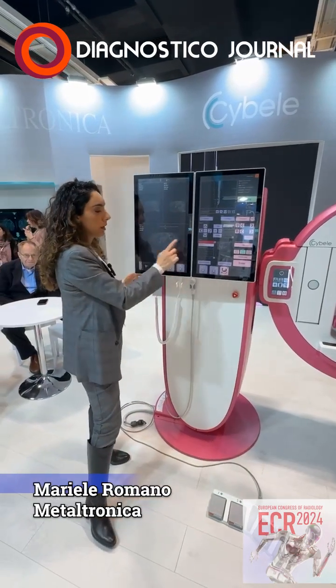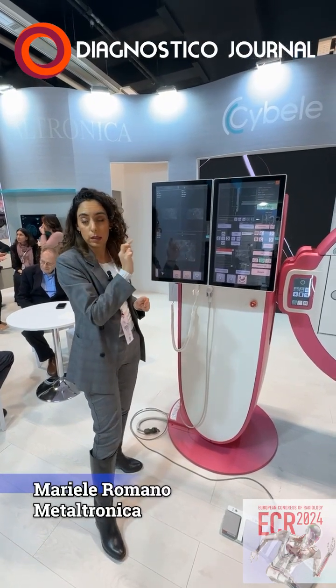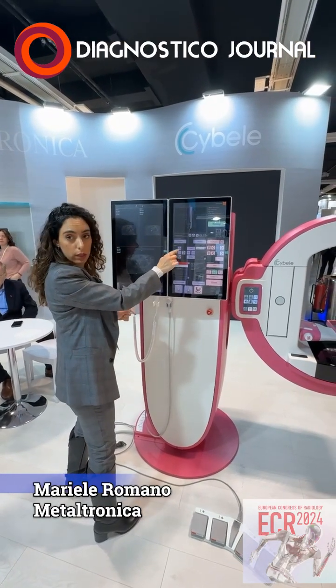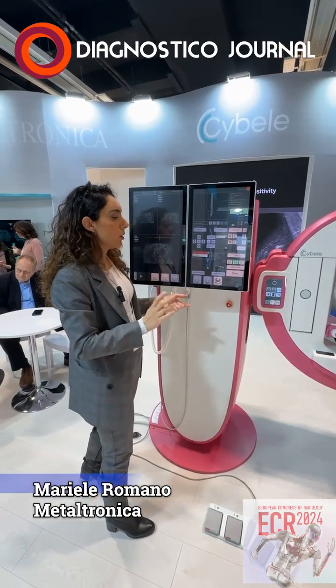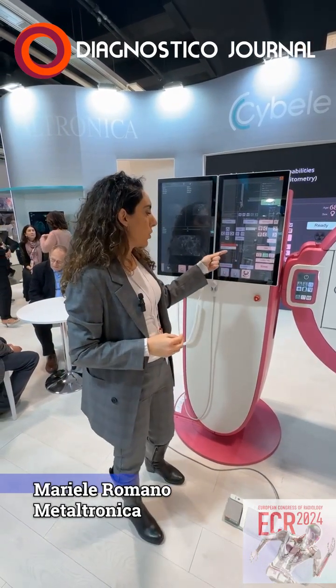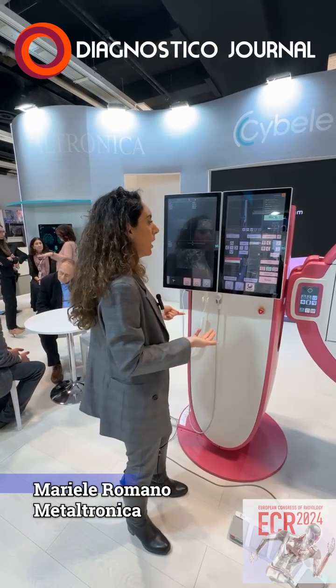So you have here your tomo. You select the target by adding a target and then moving your arrows just to be as precise as you want. Once you're satisfied, you can also, of course, add as many as you want, and you can decide which device you want to use. So we are compatible both with guns, needles, and VAB system.